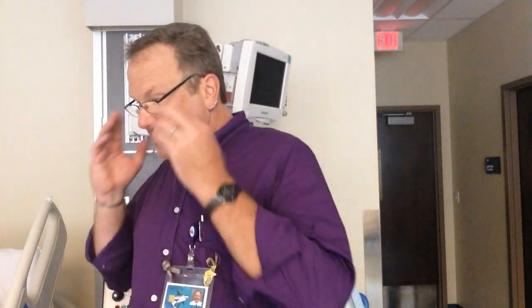Next item I'm going to go over is the small volume nebulizer. There are multiple different types out there. Typically these will be run at 6 to 8 liters per minute. At 6 liters per minute you tend to provide therapeutic particle size. 8 liters per minute, depending on the device, provides more therapeutic particle size, but if you go above 8, typically you're only decreasing the amount of time, not increasing the benefit to the patient. So therapeutic particle size, as a review, is 2 to 5 microns.